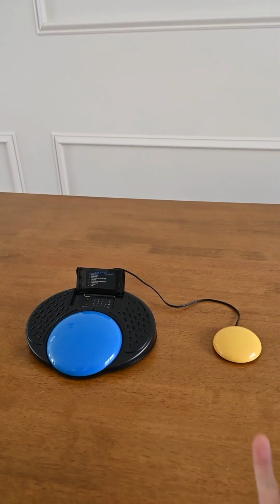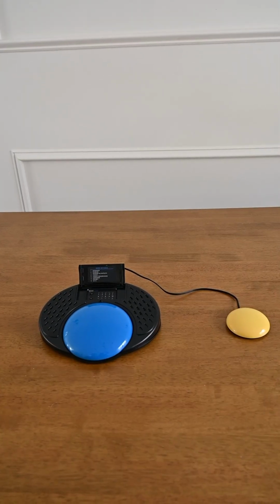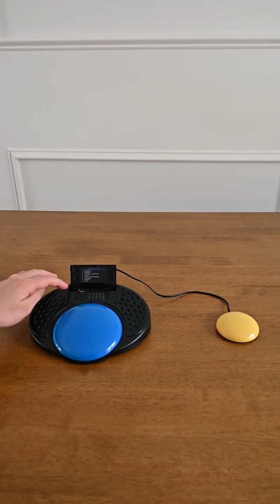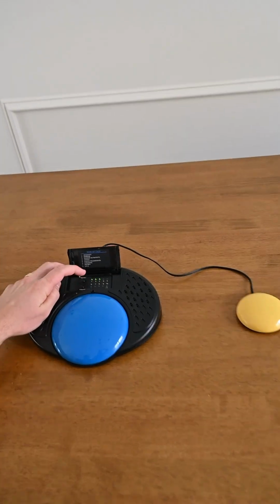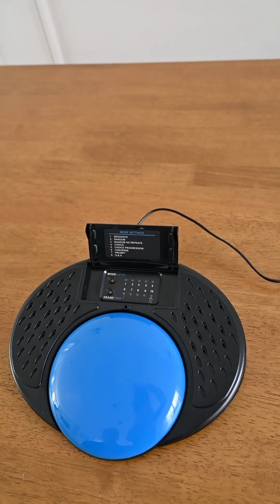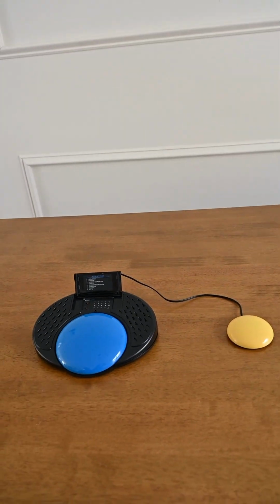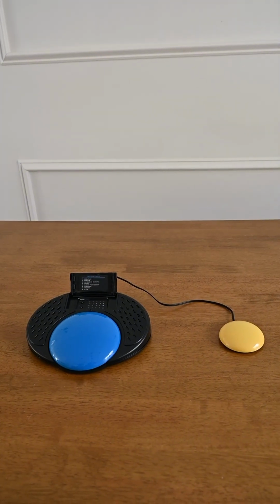No. So this can be used if you want to give the user 2 different choices. The next mode is choice progression, and I want to use different messages again that I've pre-recorded. So I'll jump over to level 3 and we will use those messages. Level 3, choice progression. Choice progression is similar to choice mode, but it steps you through different levels of choices.